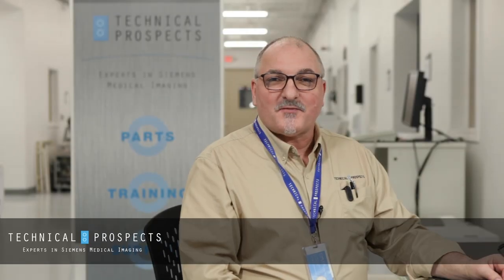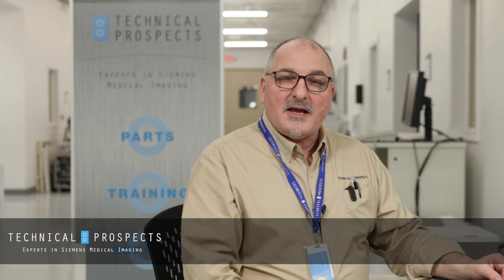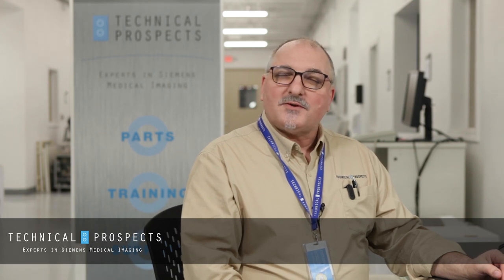Hi, this is Rick with another Tech Tip from Technical Prospects. Today we're going to be discussing how to match the light field to an x-ray field with a collimator.